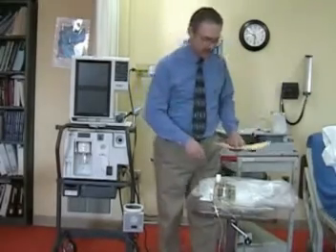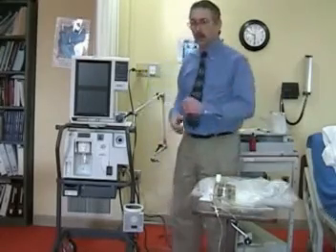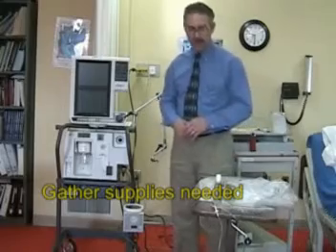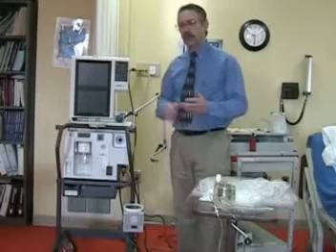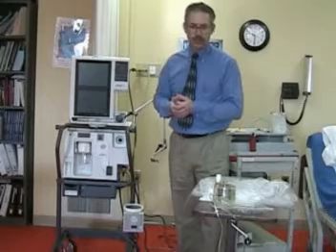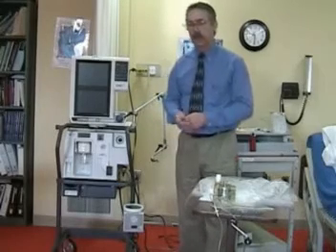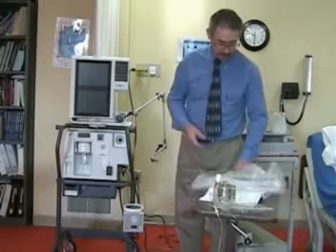Once you've scanned the chart and have a better idea of what the patient needs to be on and why they're going on the mechanical ventilator, then you want to gather your equipment: a stethoscope, ventilator tubing, humidifier, a water system, any type of oximetry if it's not on, also a cuff manometer, and other testing equipment that is necessary prior to the patient going on, such as a respirometer to measure exhaled volumes.